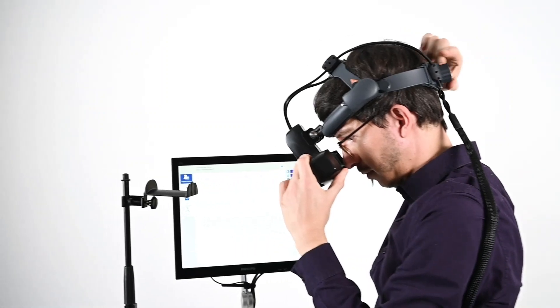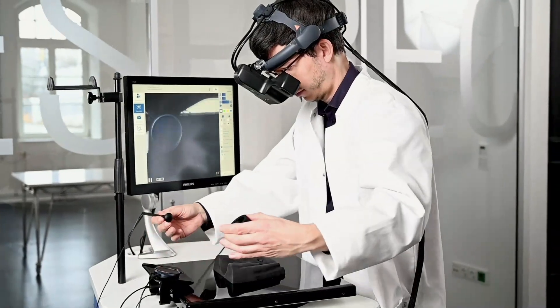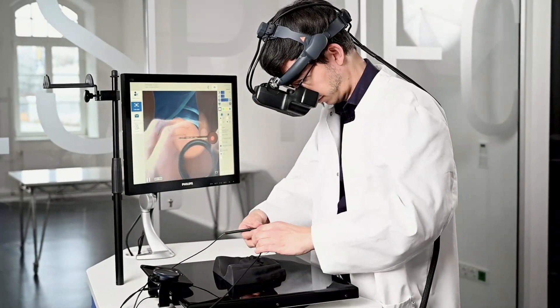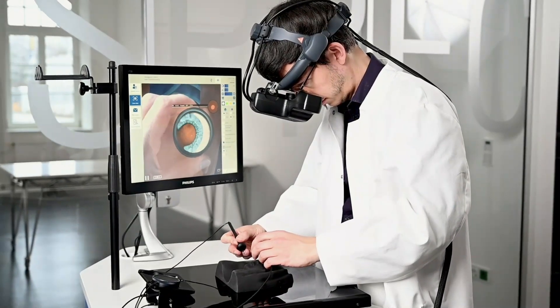The simulator enacts all relevant aspects of the examination scenario to offer eye specialists a lifelike yet risk-free training experience.